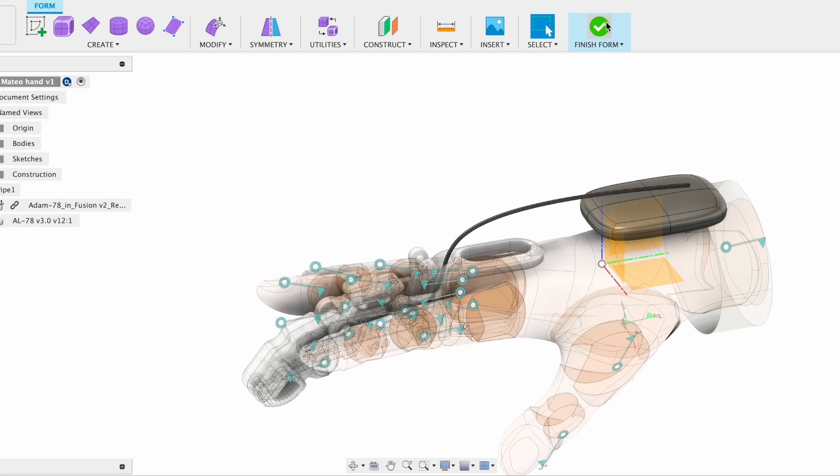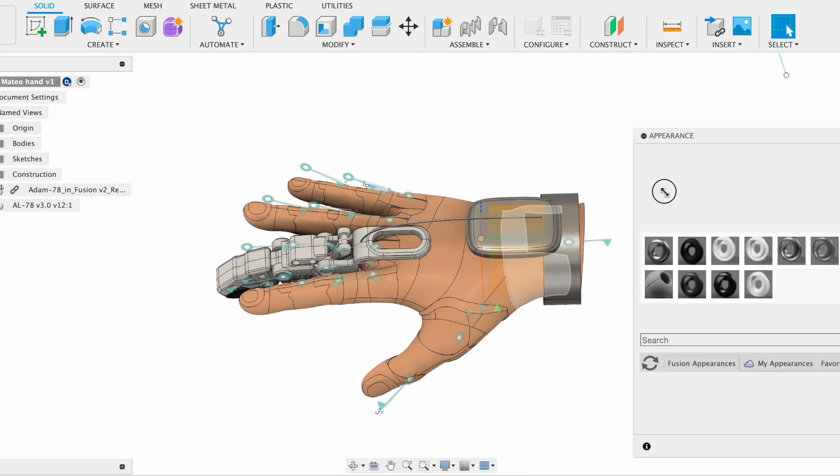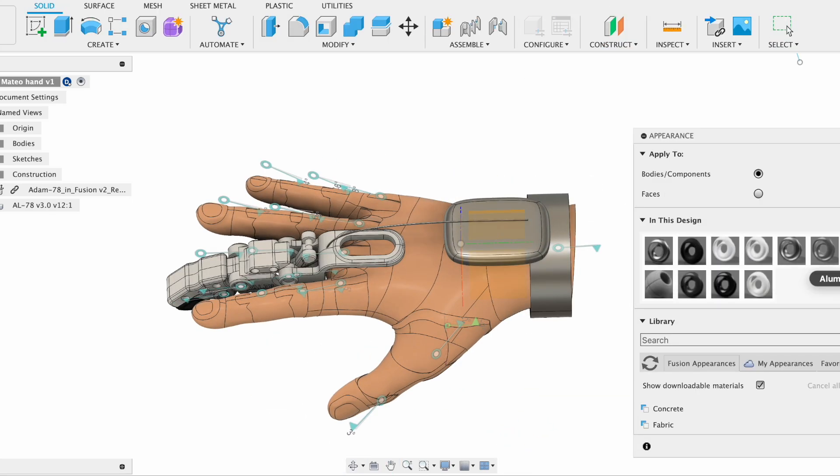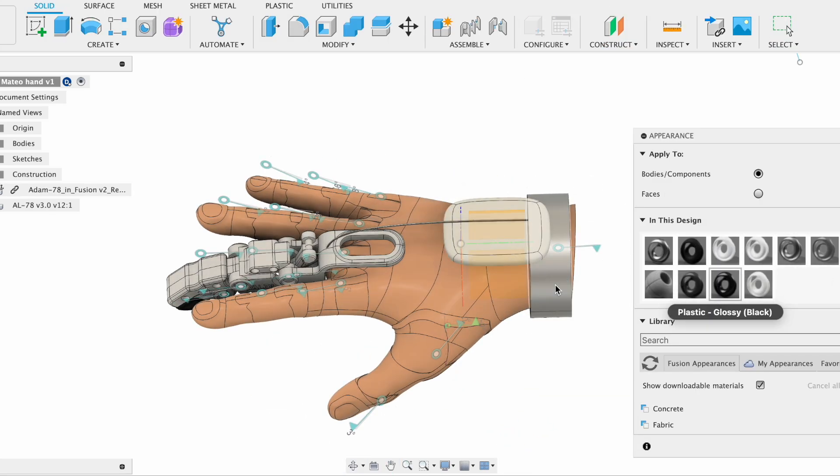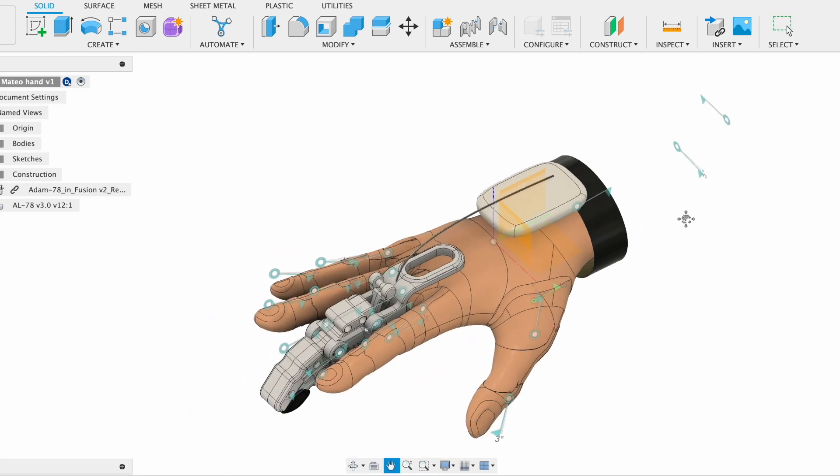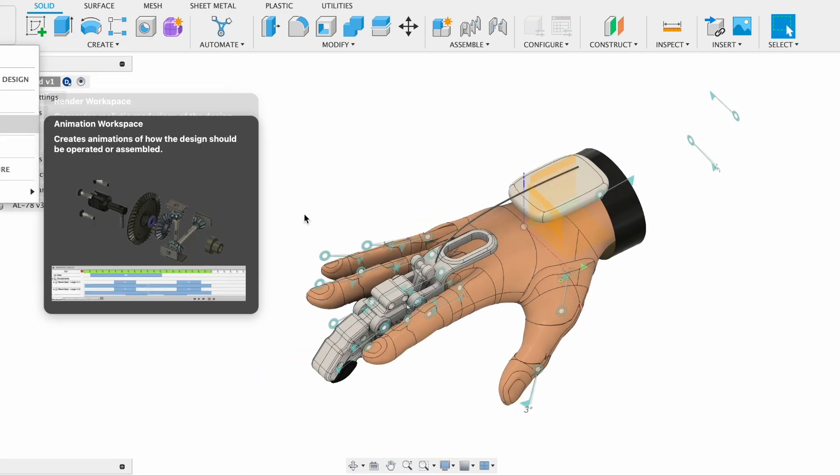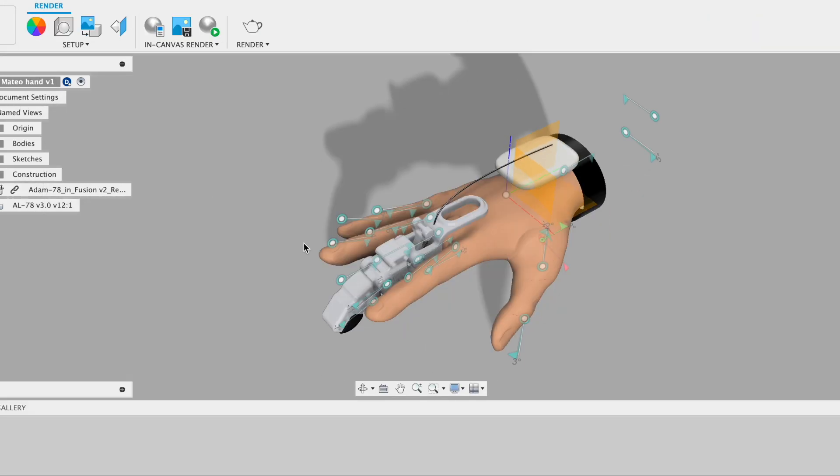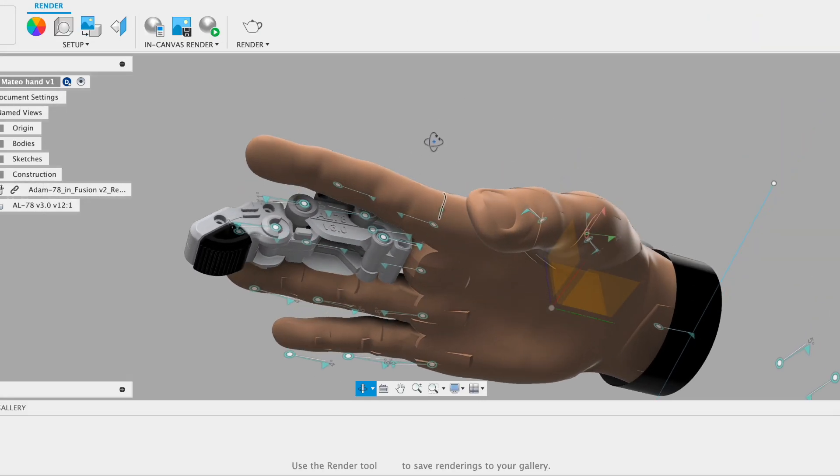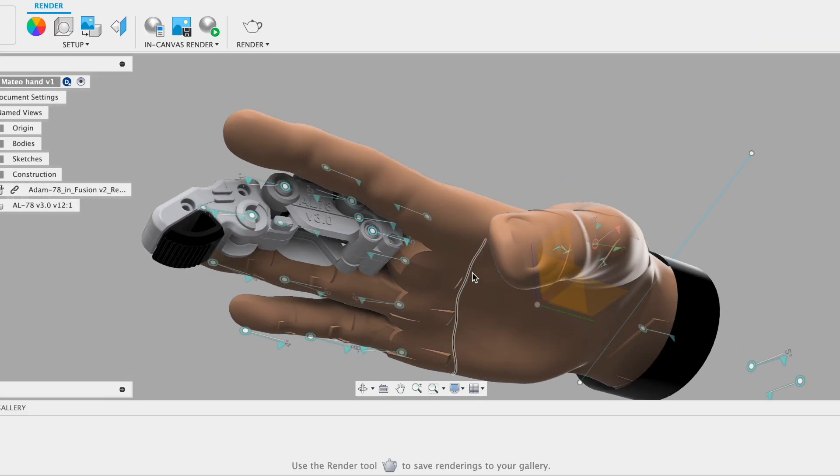So that's what I'm trying to do, and the last part is the rendering. I designate some material properties or material appearances and go to the rendering to show how it's going to look like.